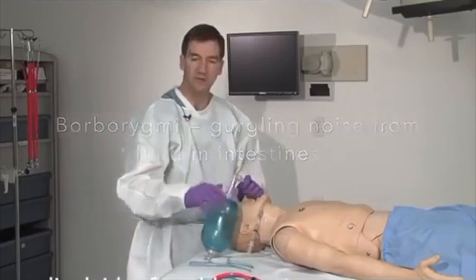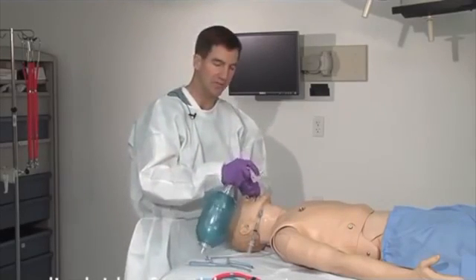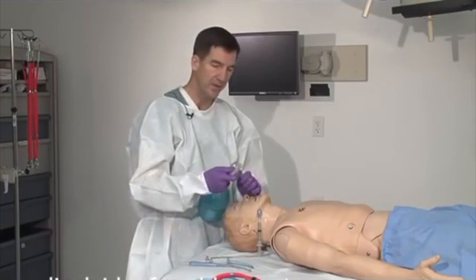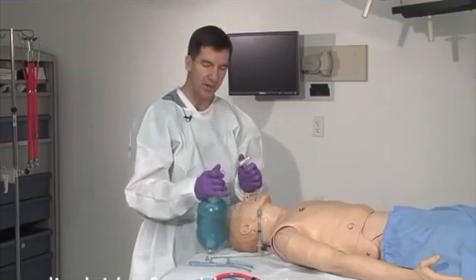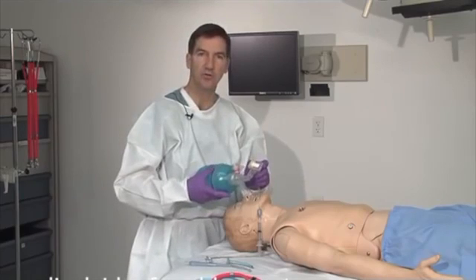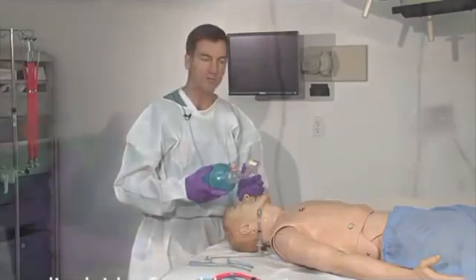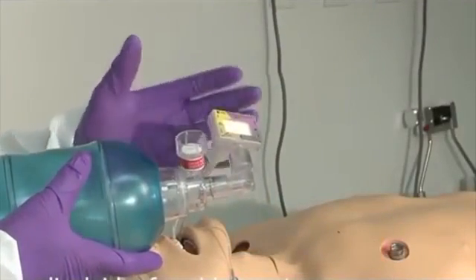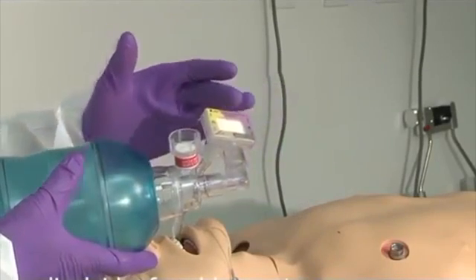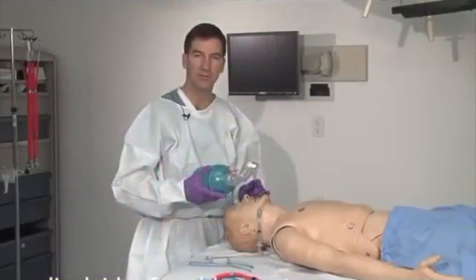An additional device is the end-tidal CO2 monitor. Once the patient has been intubated successfully, this device allows you to double-check and make sure you're in the trachea. By placing this device between the endotracheal tube and your bag, you're able to watch for a color change that witnesses CO2 level rising. Normally the color is purple when it comes out of the bag, showing low CO2 concentrations, and you expect to see this change from purple to tan to yellow, letting you know that you have successful intubation.